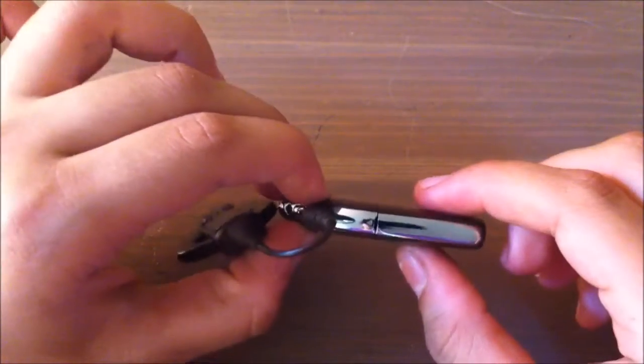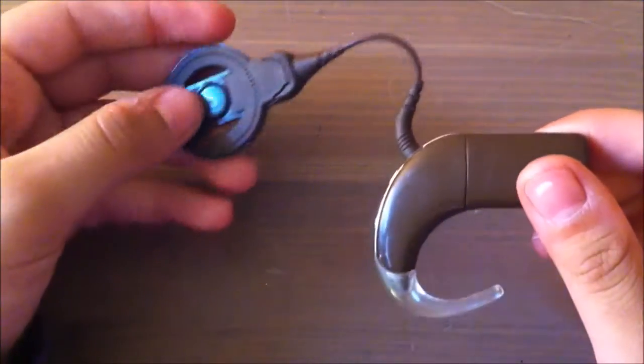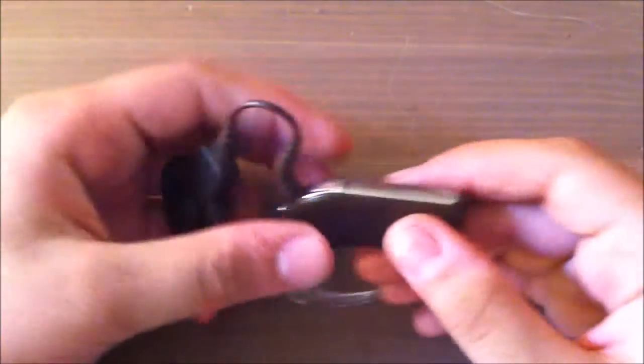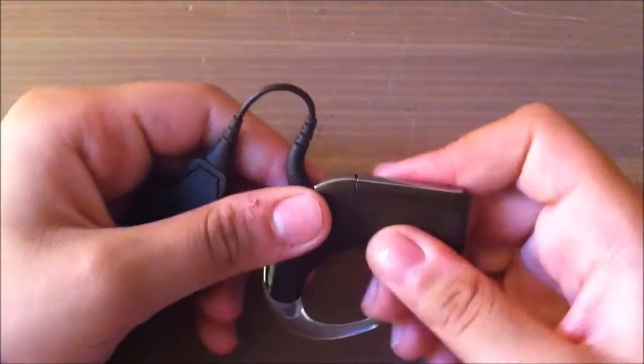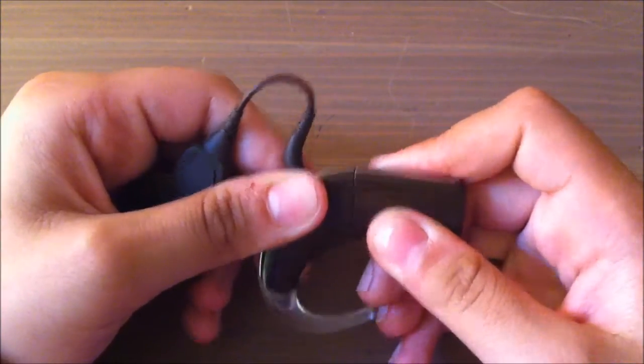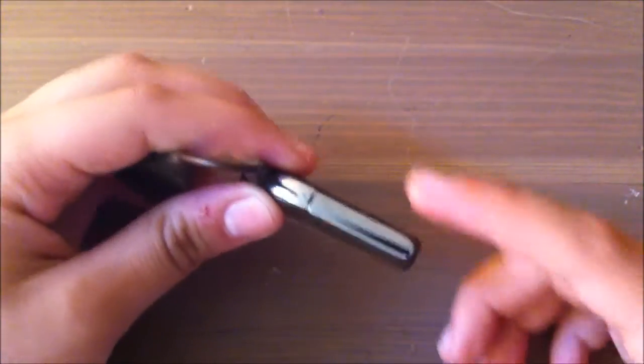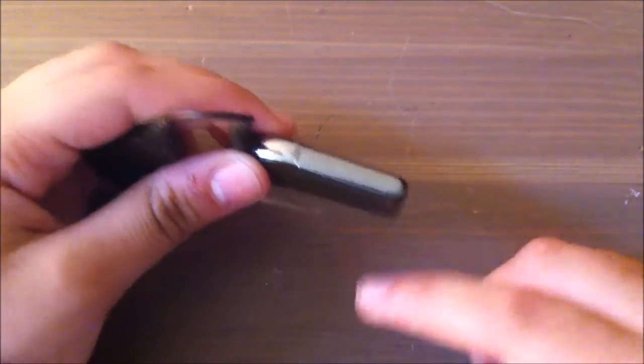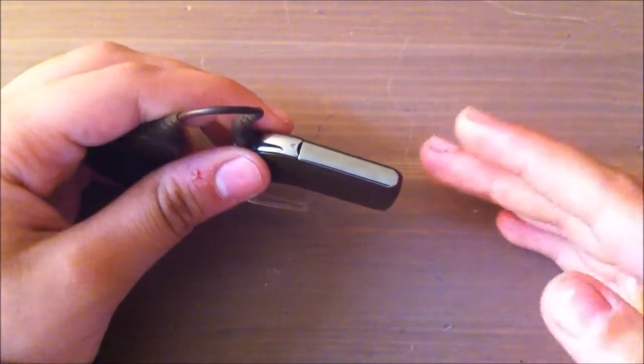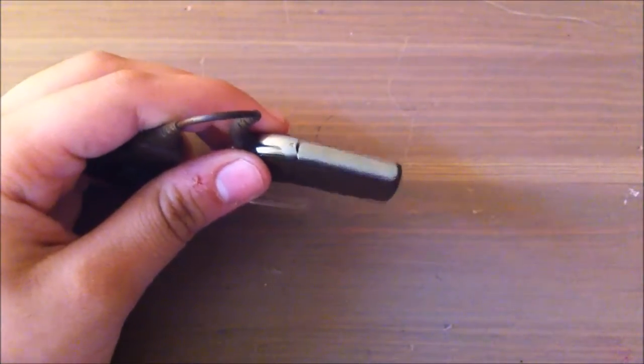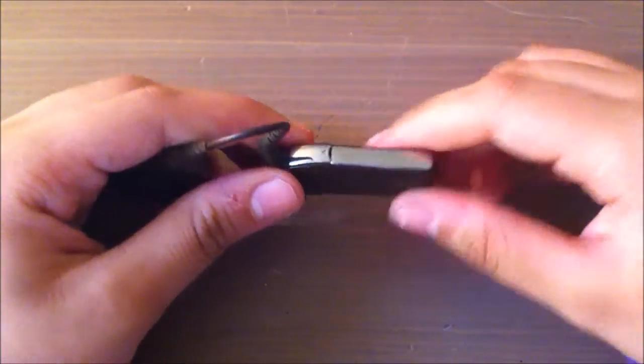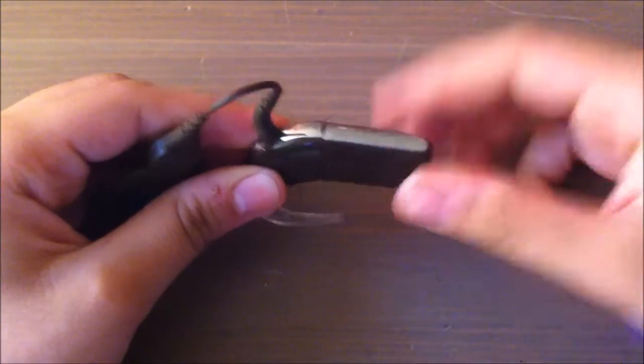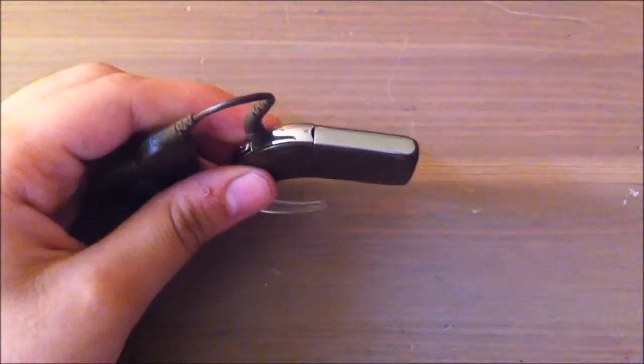This right over here is the battery. There are rechargeable and disposable batteries. This is the rechargeable right now. In another video I will be explaining the disposable batteries and the rechargeable batteries, how to tell the difference and how to use them.